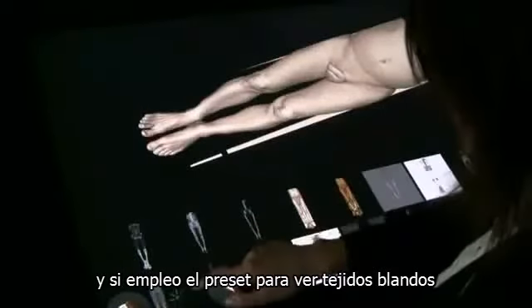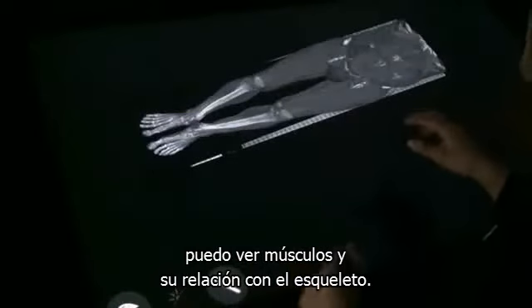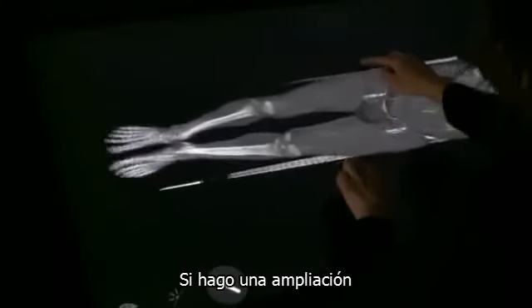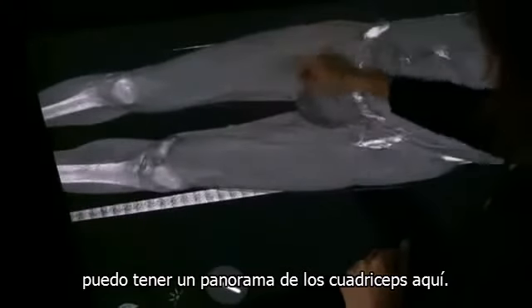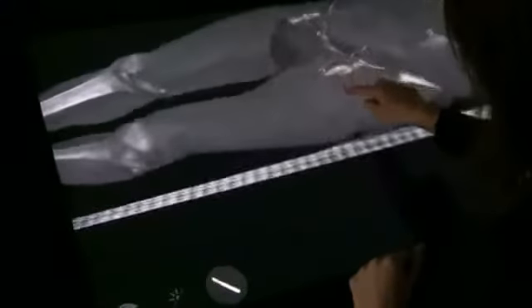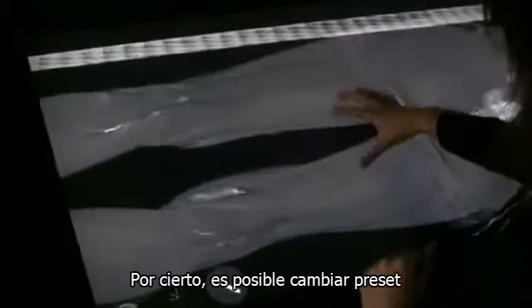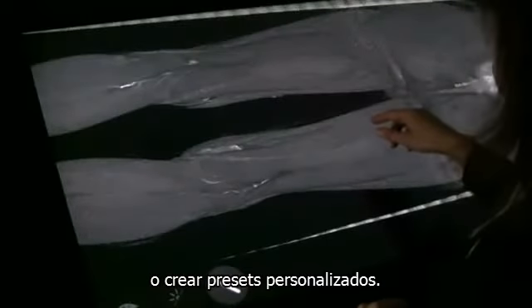And if I apply a preset that shows the soft tissue, I can see the muscles and the relationship with the skeletal tissue. And if I zoom up, you get an overview over the quadriceps here. And if I turn the patient around, I will also get an overview over the hamstring. And by the way, the presets can be changed, and you can create your own personal presets.